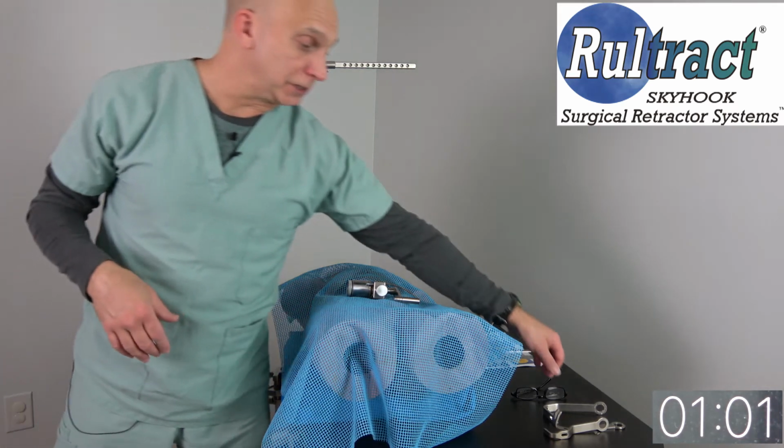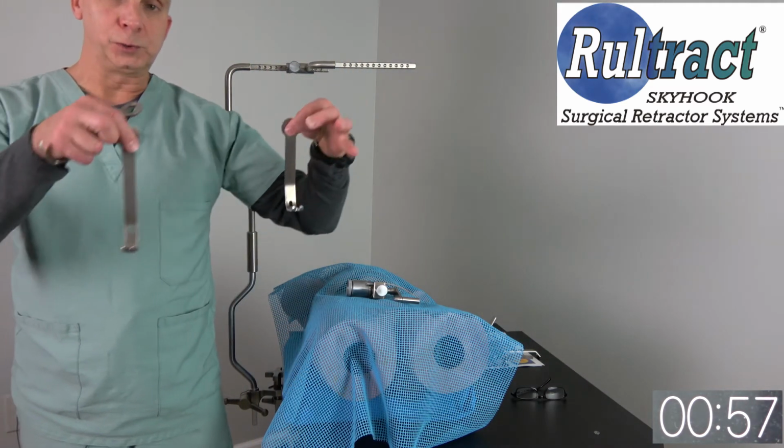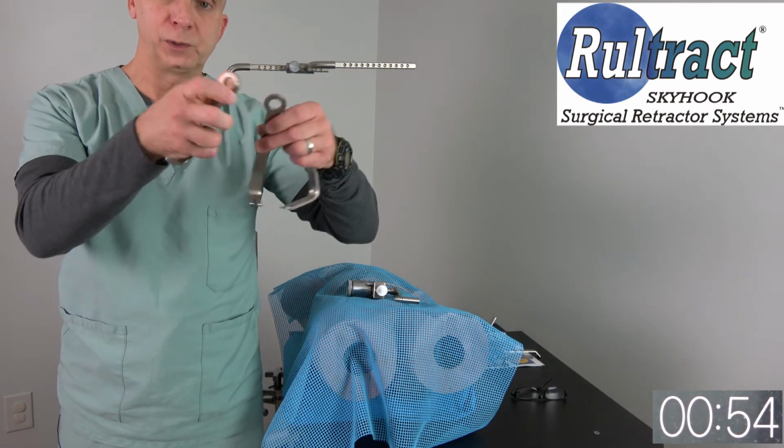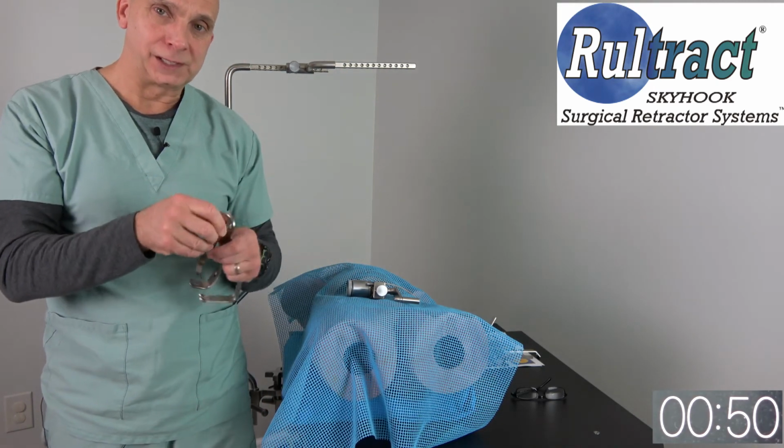Bruce, you had asked about some attachments. We have a number of different attachments that are used for subxiphoid and pericardial window incisions. I'll include those in the attachment.